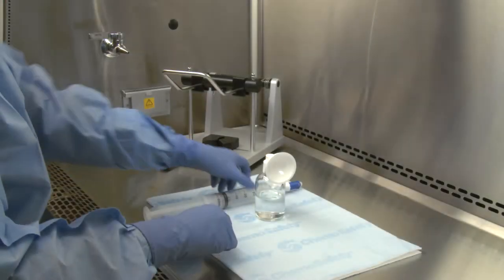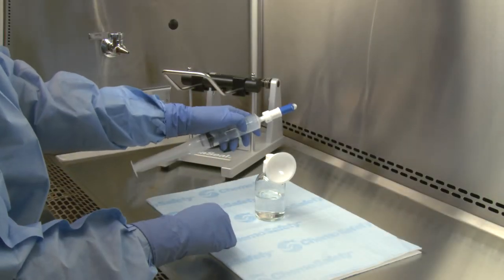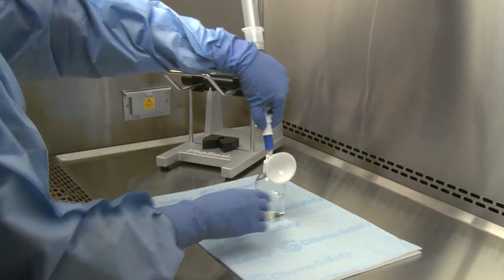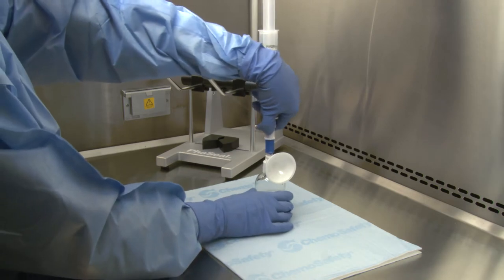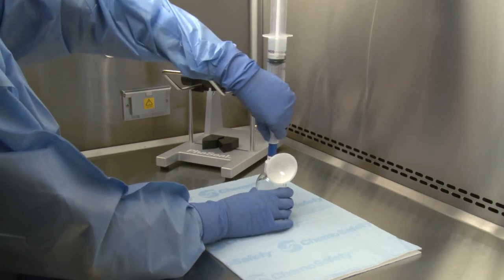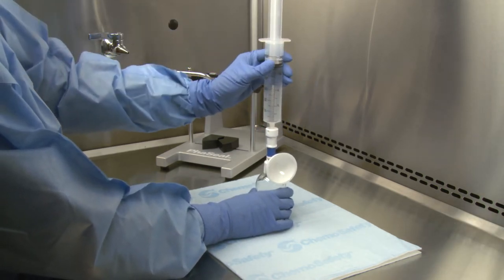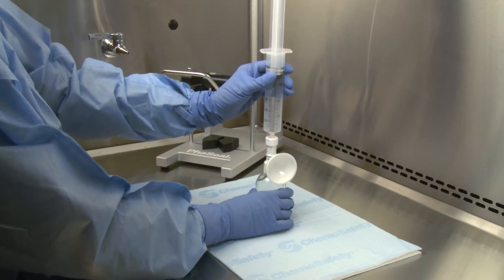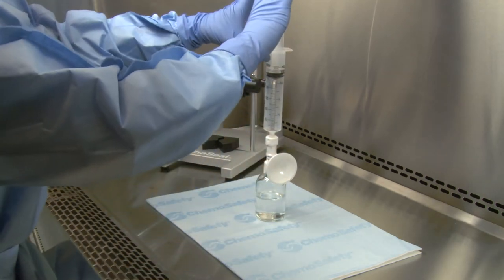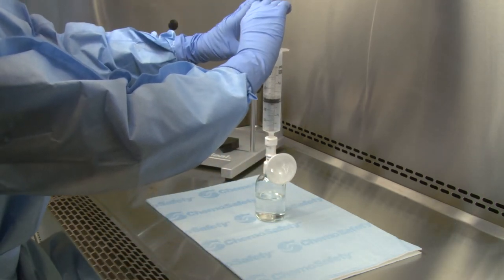First, engage the syringe unit to the vial assembly using the push-turn-push technique. Keeping the vial upright, push the diluent or air into the vial. The expansion chamber will inflate.